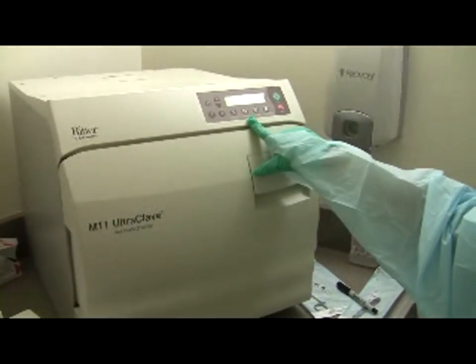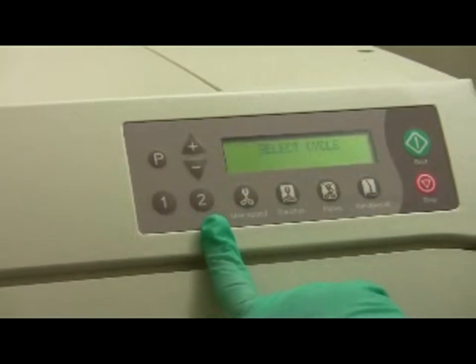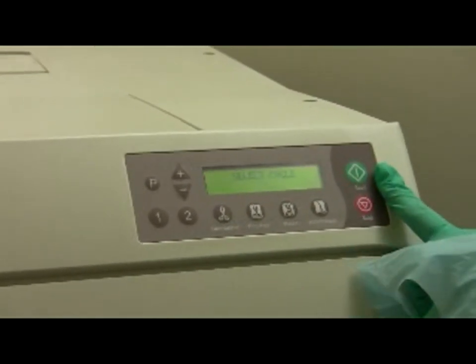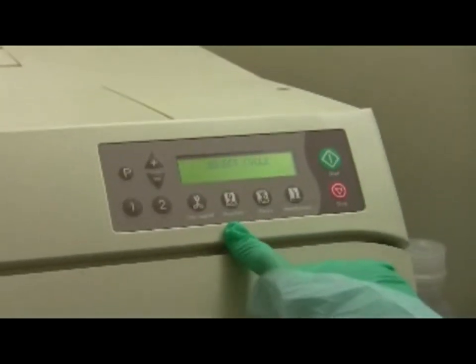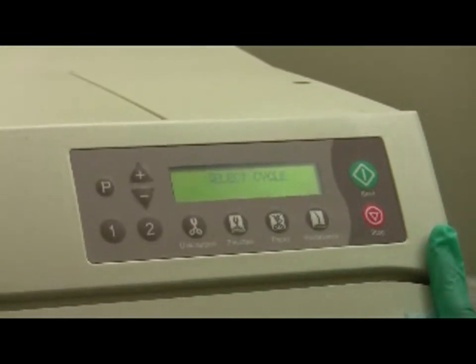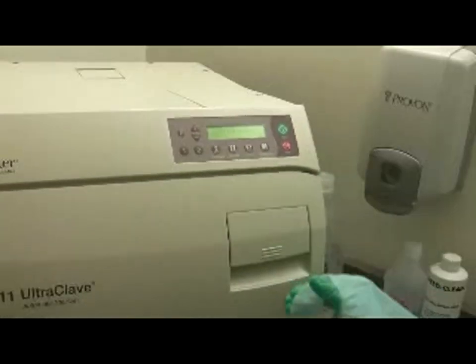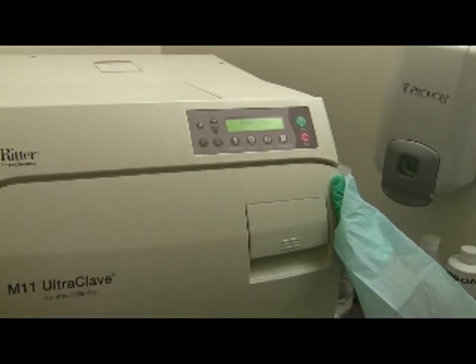Press 'Pouches' on the autoclave control panel, then press Start — you don't press one or two, just pouches. The cycle is pre-programmed with the correct temperature and pressure. It goes through a cycle of filling with water, sterilizing, then depressurizing and popping open, followed by a drying cycle. The whole process takes about 45 minutes to an hour.